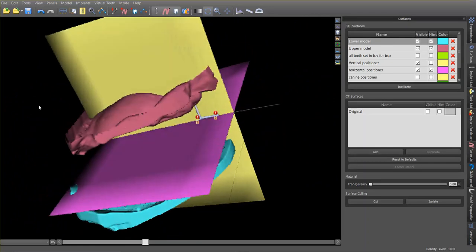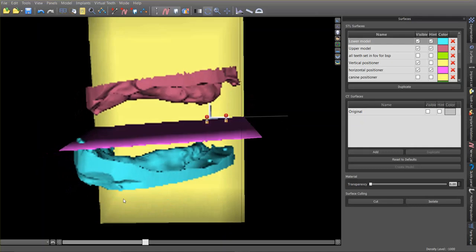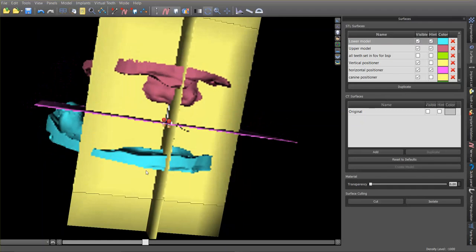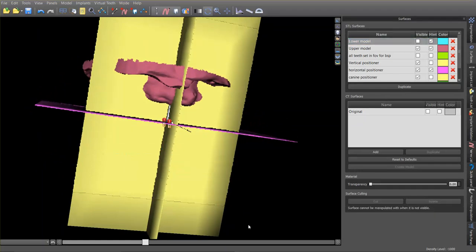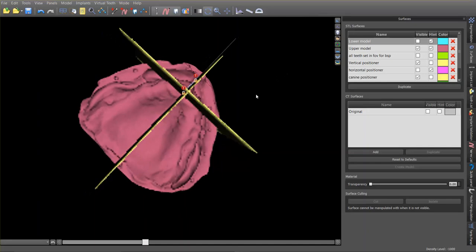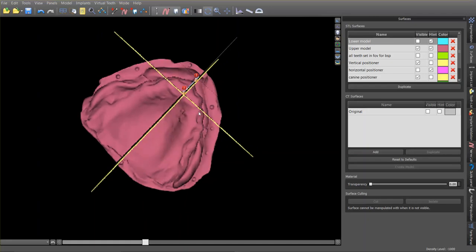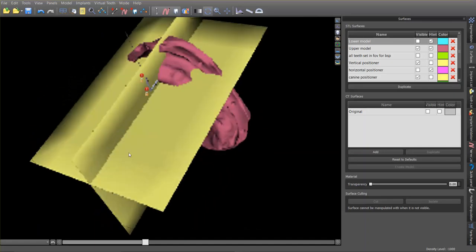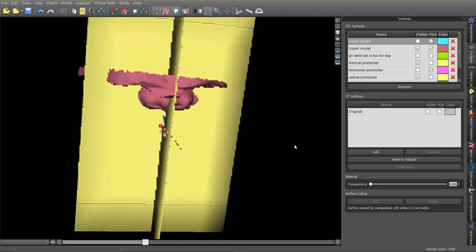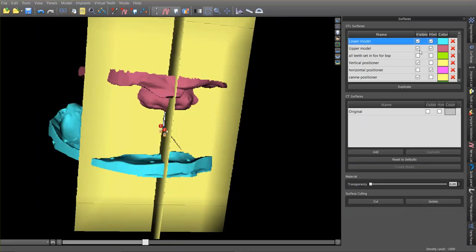The only other thing missing is how to know what size of teeth to put into these arches. From the denture literature, there's a lot of research showing that if you take a plane right through the distal part of the incisive papilla, the tips of the canines should fall on that line. So now we've defined not only the positioning of the teeth and the occlusal plane, but also the size of teeth that will be appropriate for this arch.